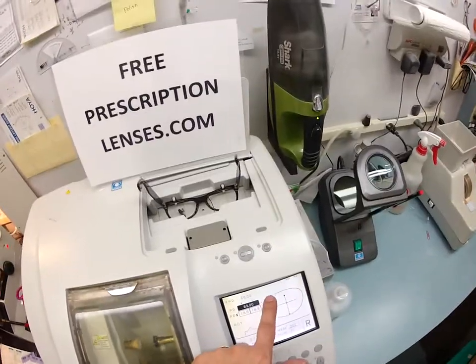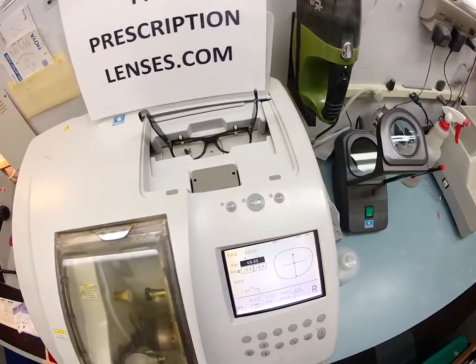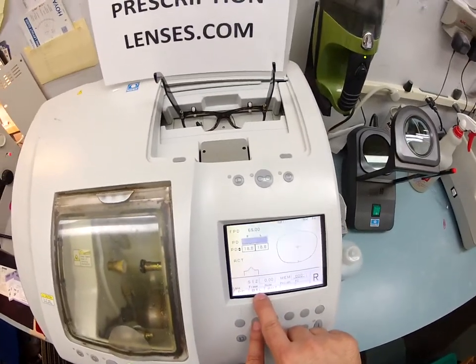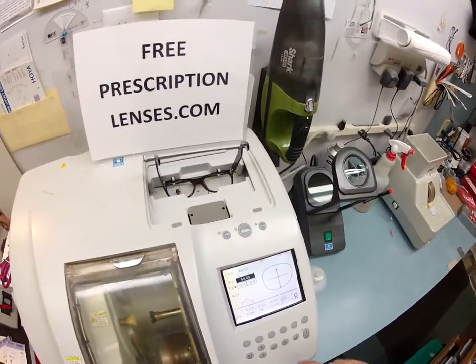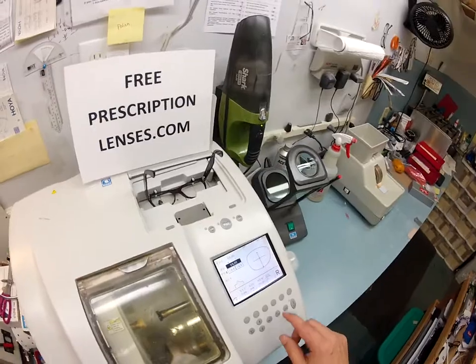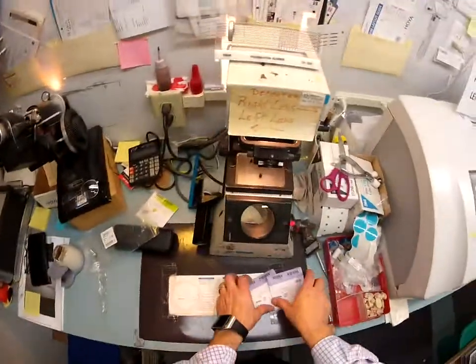This is a polycarbonate lens that I'm going to cut on the soft cycle because of the anti-glare coating. This is not a metal frame — this is a Zyle frame, which is an old school name for plastic. Right now all the plastic frames seem to be made out of acetates. So let's go ahead and start cutting the right lens.